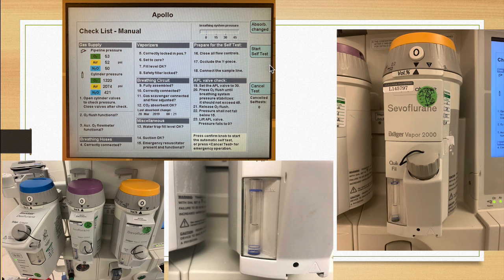Moving on to 5, 6, 7, and 8, the vaporizer portion of this checklist, we start with number 5 that says, are the vaporizers correctly locked in position? And each one of these things can be removed, so just giving them a gentle pull can help you ascertain whether or not they're locked into position. Are they all set to 0? You can see here on our 3 more common vaporizers, DES, ISO, and SEVO, that all 3 of these are set to 0.